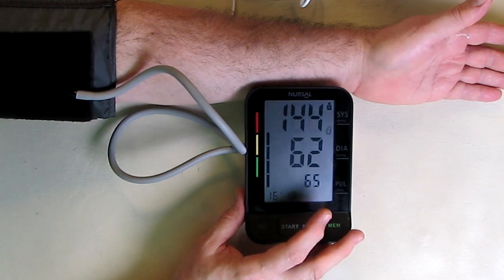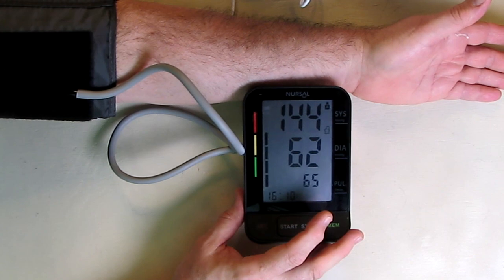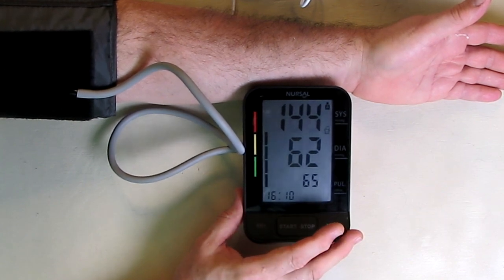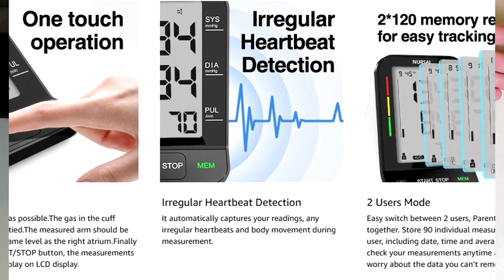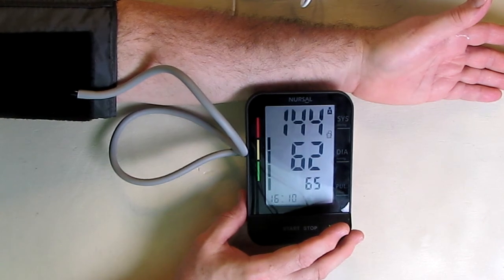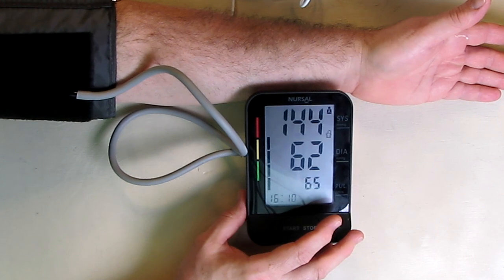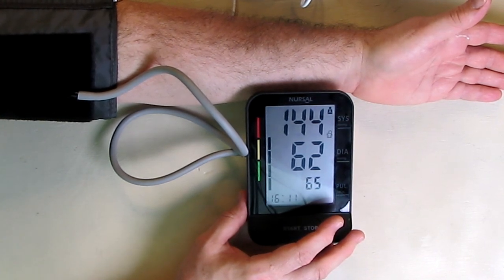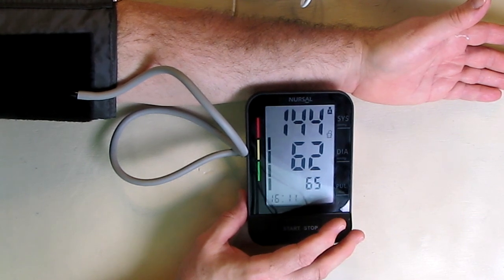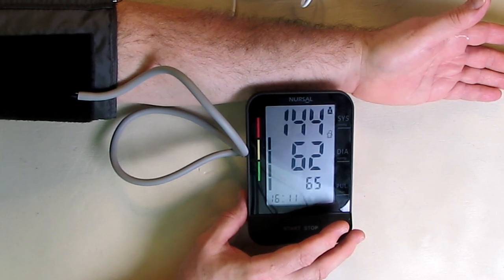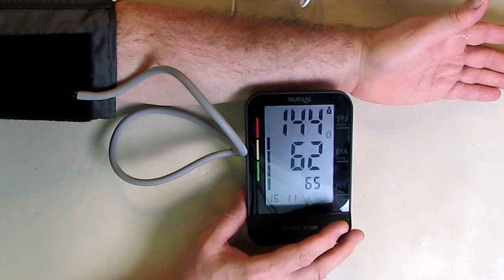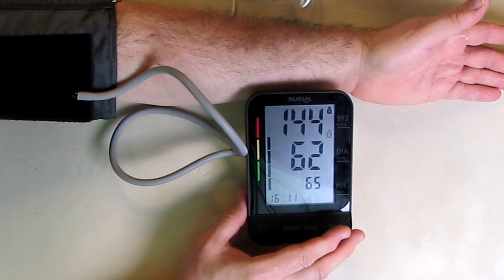Now, I do have a little slight high blood pressure, but that's my blood pressure: 144 over 62 with pulse 65. If I had some irregular heartbeat, it would have shown that information on the display. If you get that very often, mention that to your doctor. Another thing you could do is bring this device in when you see your doctor and have him compare this measurement to the measurement in the office. That way, you get a reference point to see if this is being accurate. That's an accurate blood pressure measurement. I have another device, and I just measured it, so that's correct.